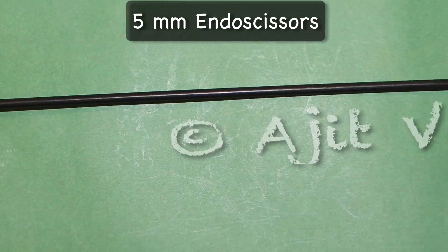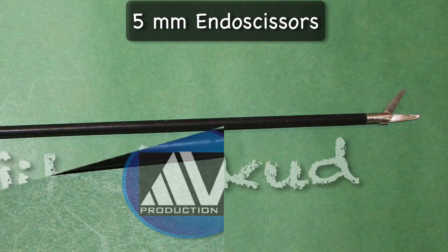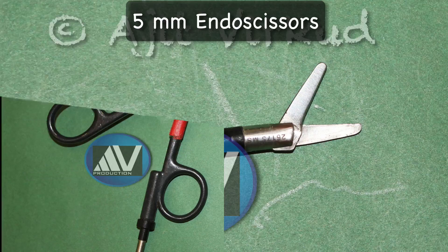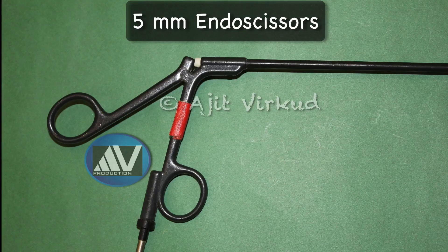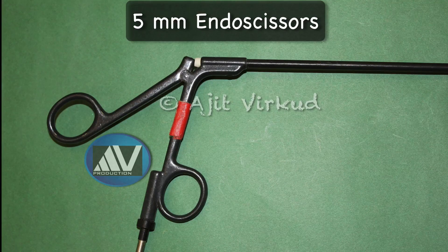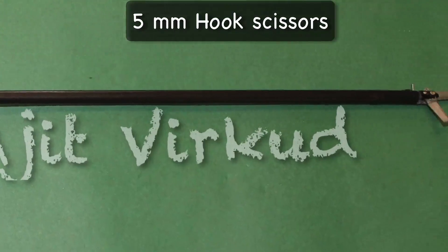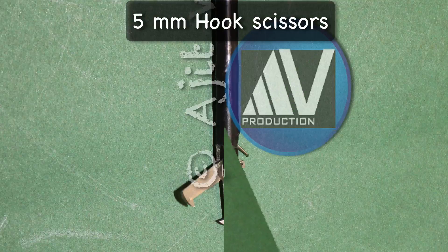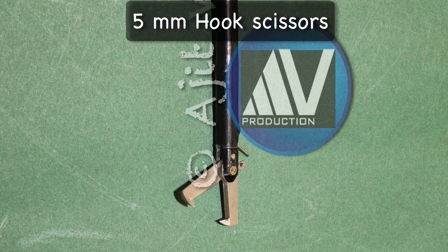Now I will show various hand instruments used in operative laparoscopy. 5mm endo scissors, 1st generation, one fixed jaw and the other mobile. 5mm hook scissors, 1st generation, one fixed jaw and the other mobile.